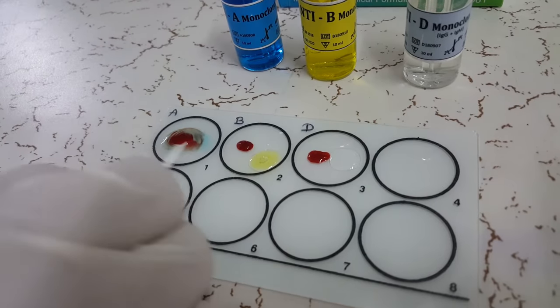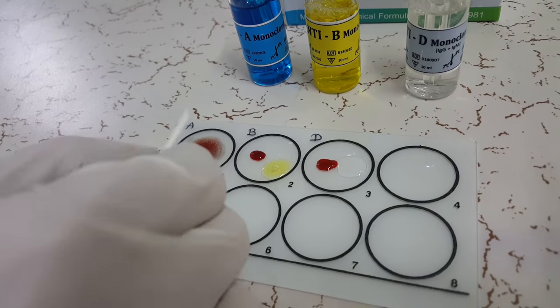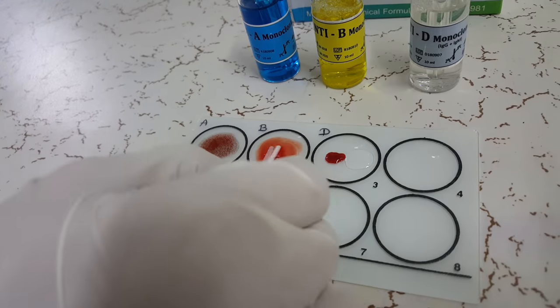Mix the components of each circle with a mixing stick. Make sure to use a fresh tip or fresh end of the same tip for different circles.